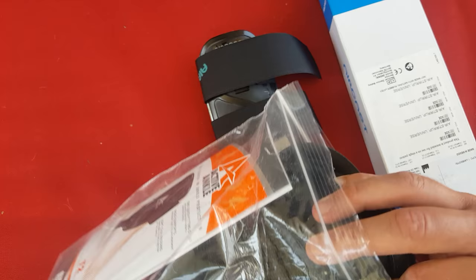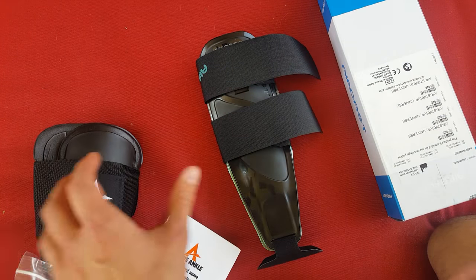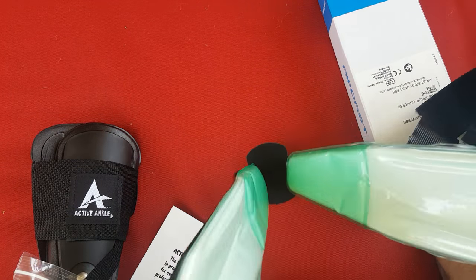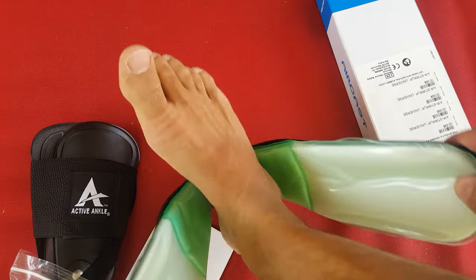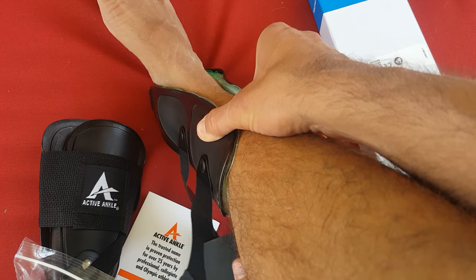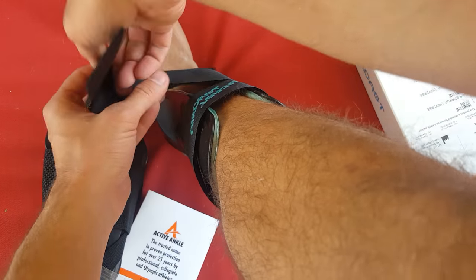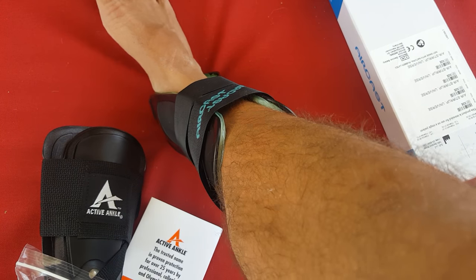These types of braces are fairly rigid. These are good options for right after you sustained an ankle injury. They work really well — they will really support your ankle and they're also pretty restrictive. It goes on something like this, you put it around your ankle and it holds you in a much better position. It allows you to walk around, but you really have to try it on because it's fairly bulky, so if you're going to be athletic with it, it really restricts your range of motion.